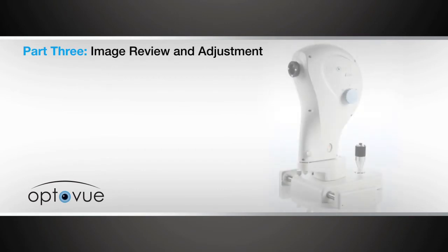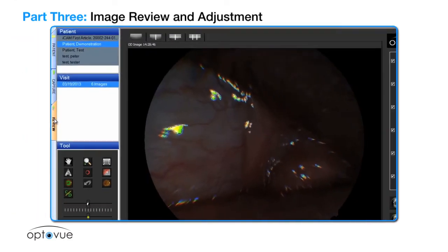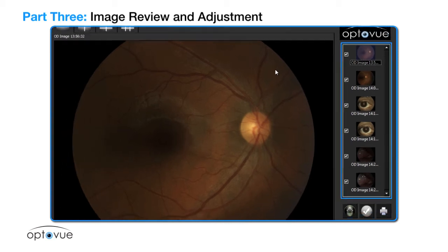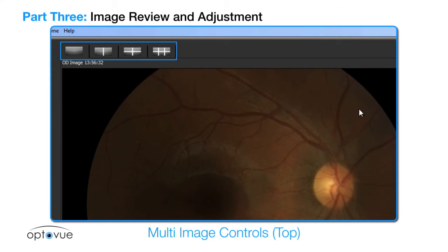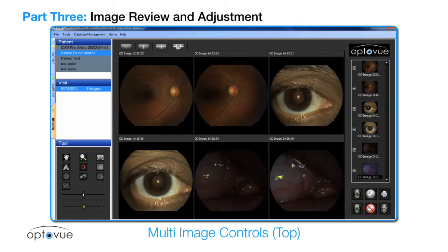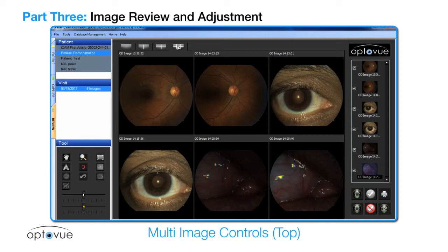Part 3: Image review and adjustment. Select review from the tabs on the left side of the screen. In review mode, the images are displayed on the right from first to last, with the last image taken displayed on the central screen. Multi-image controls are at the top of the screen and determine the number of images displayed — select from 1 to 6. Note that in the multiple display format, not all functions are available; the buttons will gray out. The multi-image format can be used to compare left and right optic nerves.